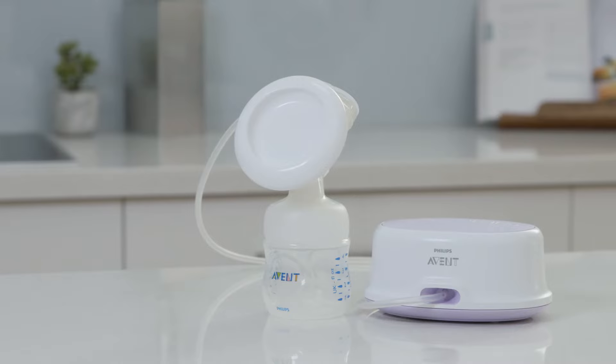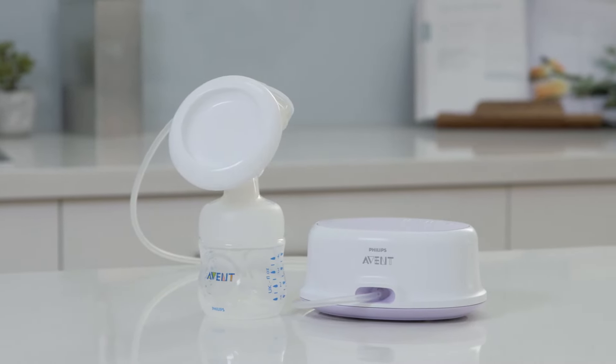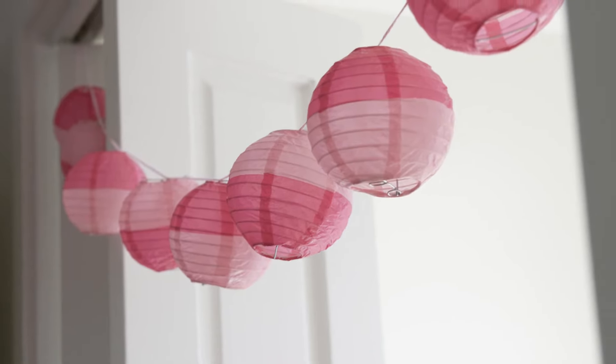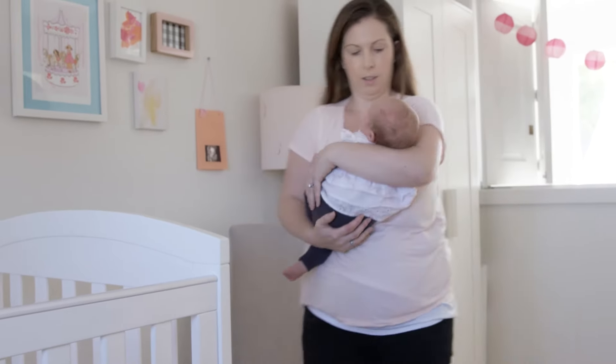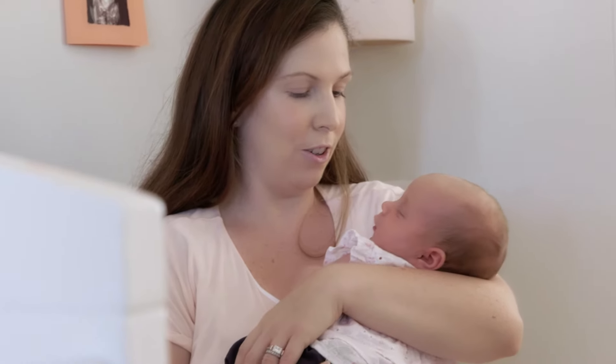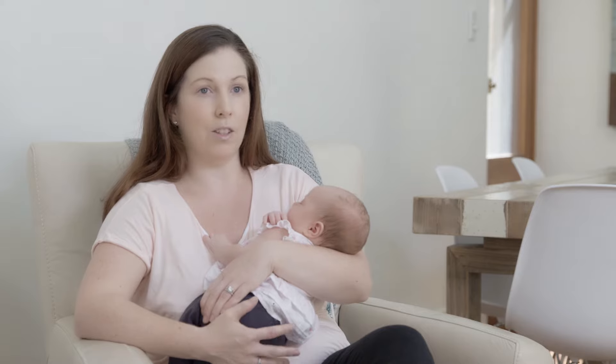For the last few weeks I've been using the Philips Avent Comfort electric breast pump and it's been great. Olivia is my third little girl, so I knew coming home from hospital I was going to be really busy, so wanting to express was really important. Then when I got home I actually had a few problems with breastfeeding, so expressing became something I had to do.